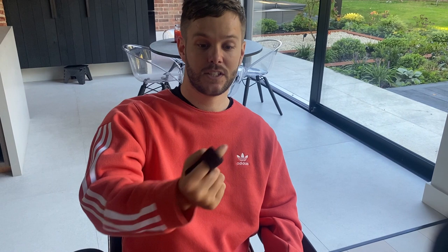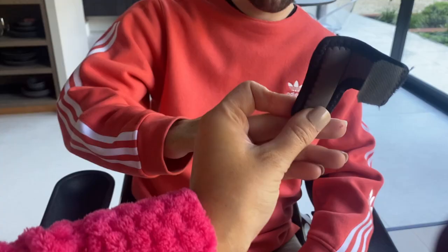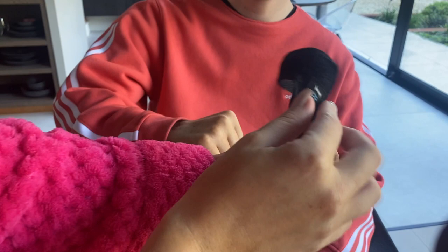I've also got this one. As I said, I've tried loads of different ones in the past and I still use this one sometimes. The finger slides onto it and then you Velcro it over the top. It's a bit more rigid and firmer than the other one, so if I'm going to be on my laptop for a long time or doing a lot of typing, this one's quite good because it supports my finger a bit better.